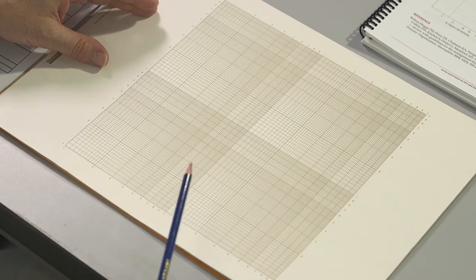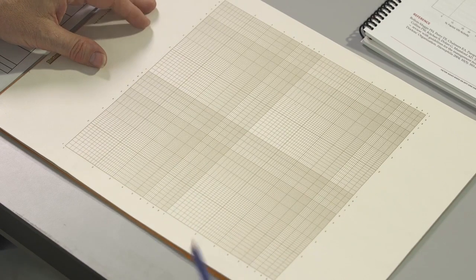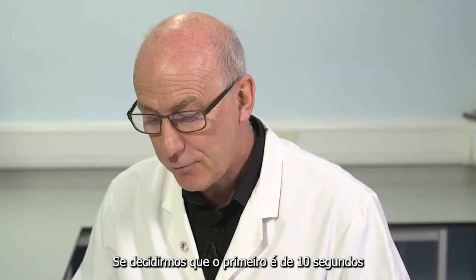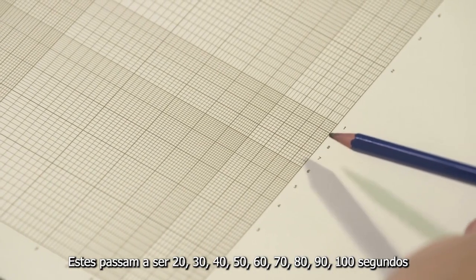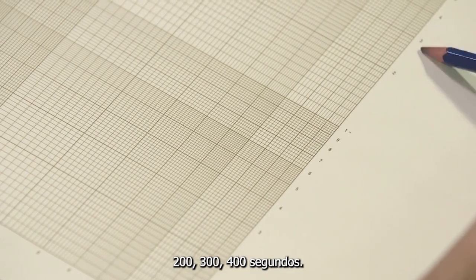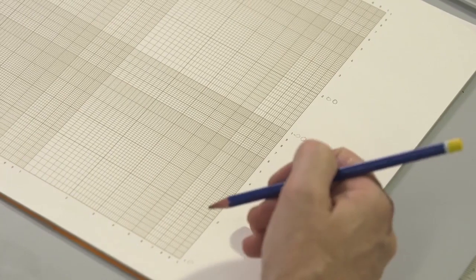We plot the concentration of factor VIII along the x-axis, the clotting time in seconds on the y-axis. If we decide the first one is 10 seconds, these become 20, 30, 40, 50, 60, 70, 80, 90, 100 seconds, 200, 300, 400. So 10 seconds, 100 seconds, 200 seconds. Plotting time.